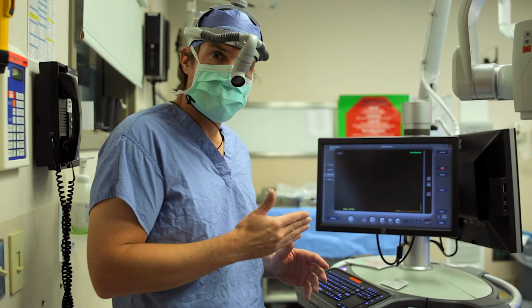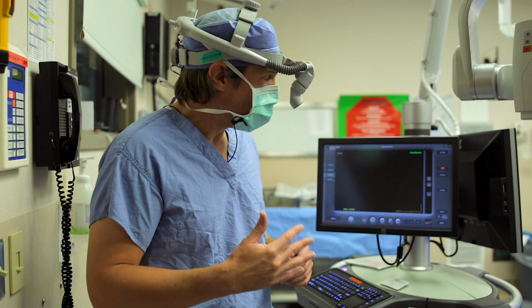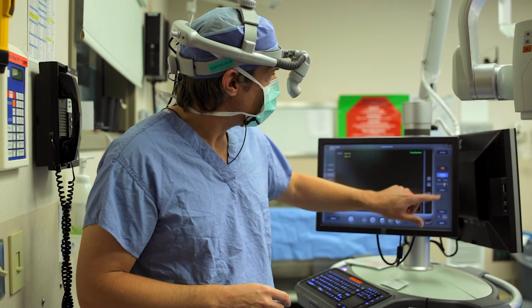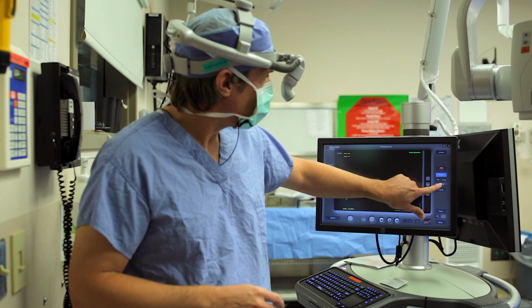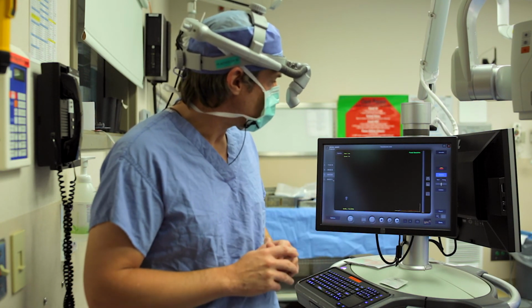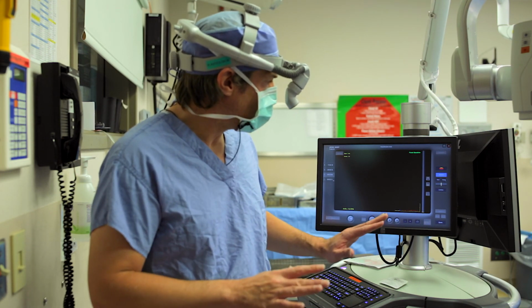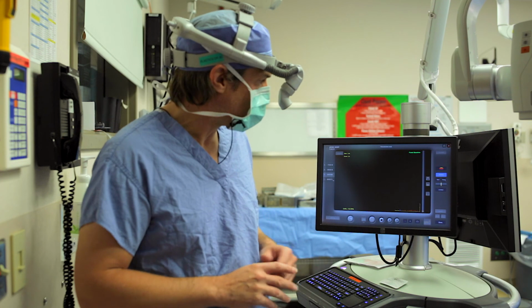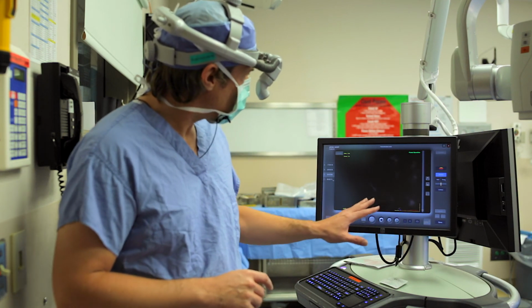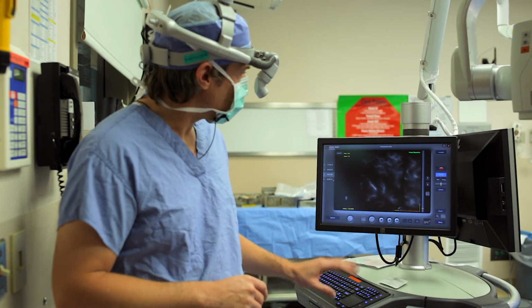So, to review an image that you've already obtained, there are a couple of buttons that are going to be helpful for you. You're going to tap Viewing and put this into about the middle position. Still going to give us a black and white image, and then what we're going to do is hit play. And we're going to watch this in real time. We're not going to go fast forward. You can see that with every pulse of the heart, I'm just going to pause it right there.